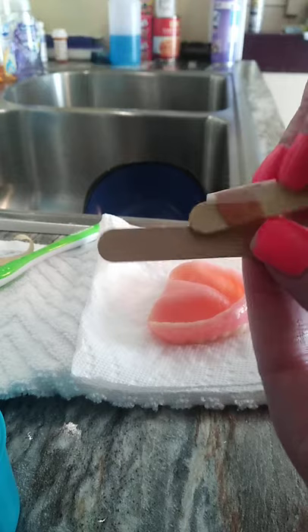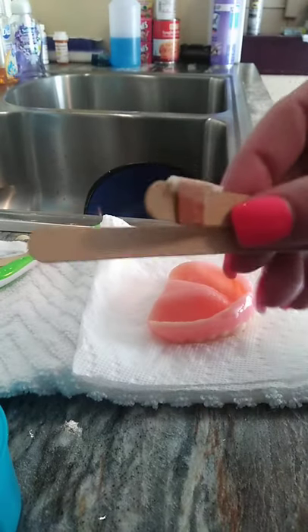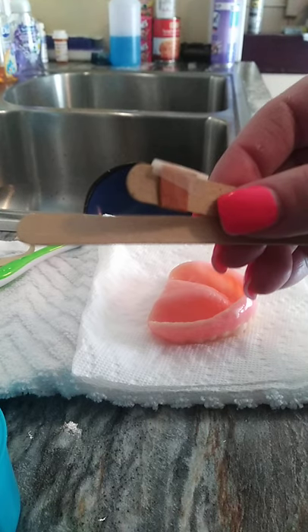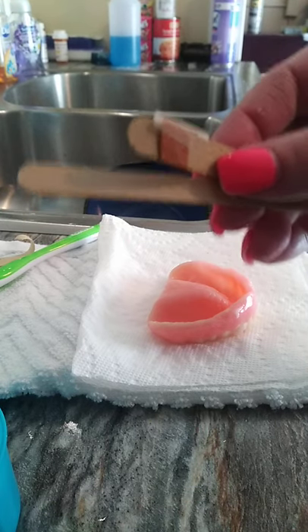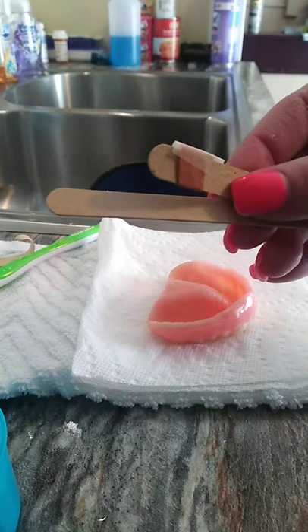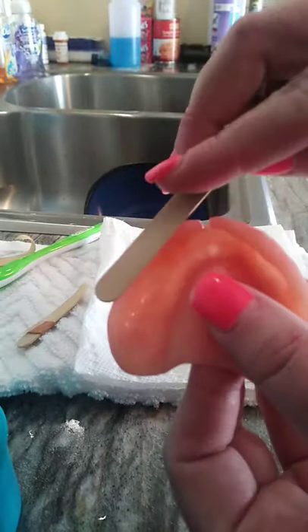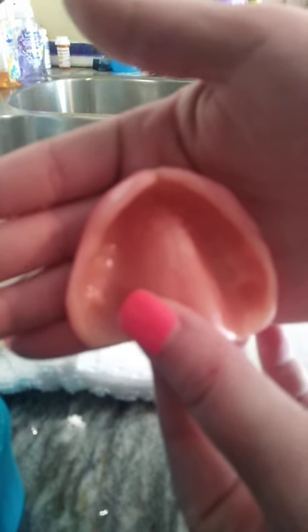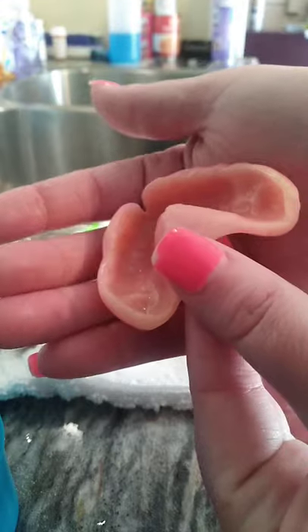What's cool is when you use nail files and emery boards and all that stuff, it's actually way safer than using a Dremel, especially for small adjustments like this. If you want to just take off the top, you can simply use this and go like this and it makes it shorter. To do adjustments at home, it is not going to affect your warranty because it's not going to damage your denture at all. So you can definitely do your own adjustments at home.